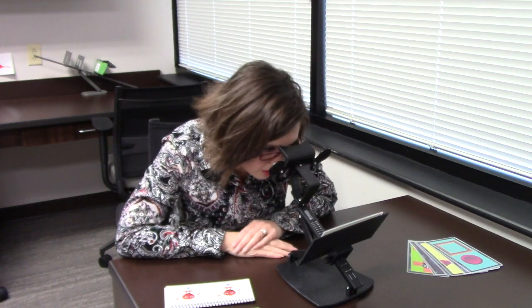There are actually a lot of different things we can do with this one, and I have some of the cards sitting on the table. There are multiple levels of difficulty. Level one would look something like this — we put the card on here, line things up, and look through the instrument. What you have to do is fuse and put these two X's into one.